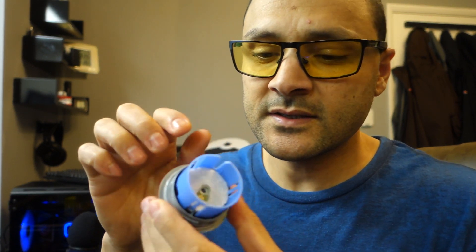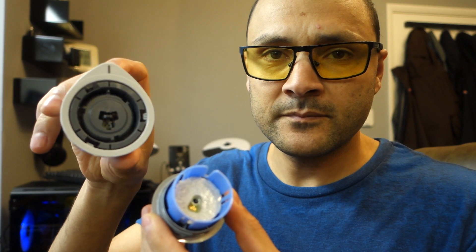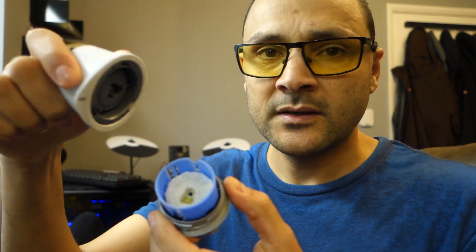So basically, that's where the sensor is, and the little film that goes in, and this is the rest of the sensor which will attach to the needle in there. Then you apply it on your skin.